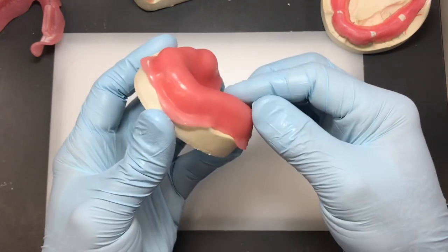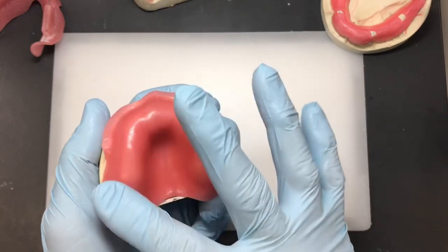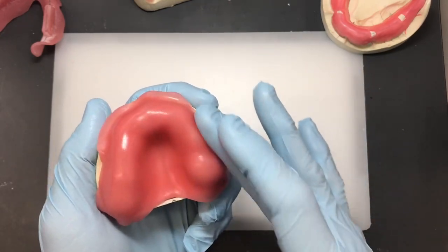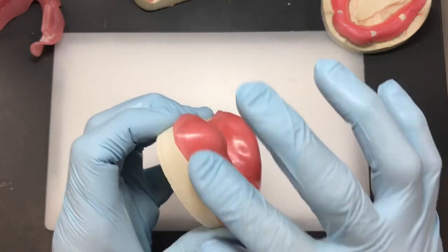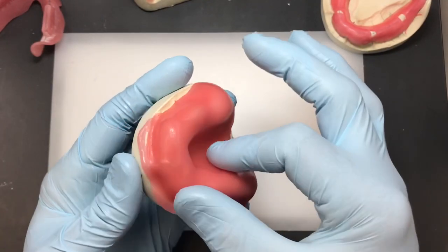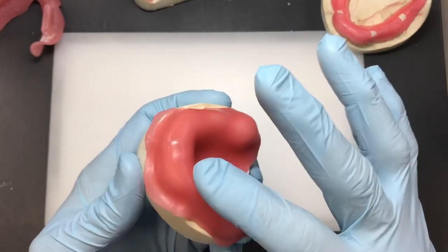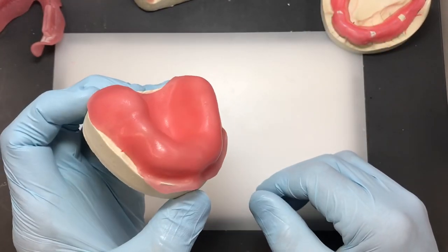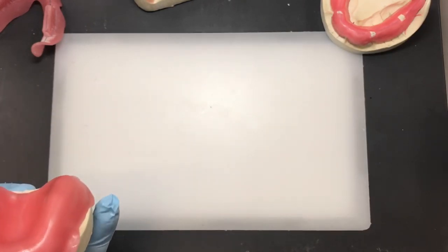If you smear the material a little it becomes glossy and gives it a nice shine, whereas otherwise it has a matte finish. Smearing with your fingertip also removes fingerprint marks and ensures even adaptation with no thin areas — use the broad portions of your fingertips throughout. From this point, take your surgical blade and cut the material. It's always a good idea to have your Bunsen burner turned on so you can heat the blade tip before cutting.